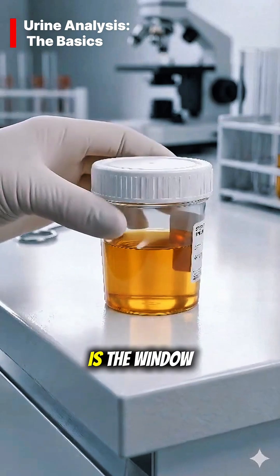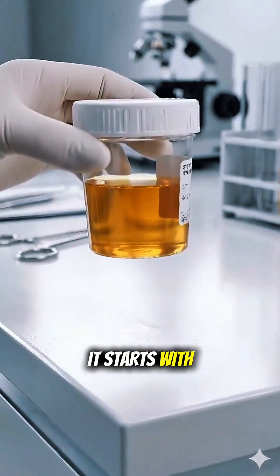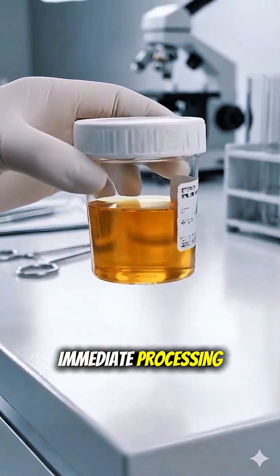A complete urinalysis is the window to your kidney health. It starts with proper collection and immediate processing.